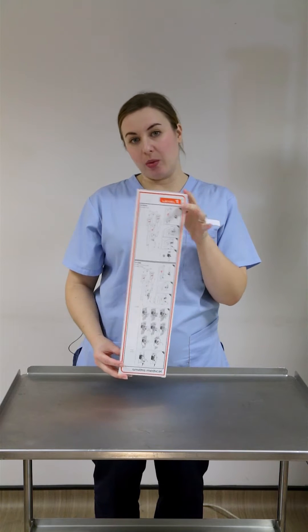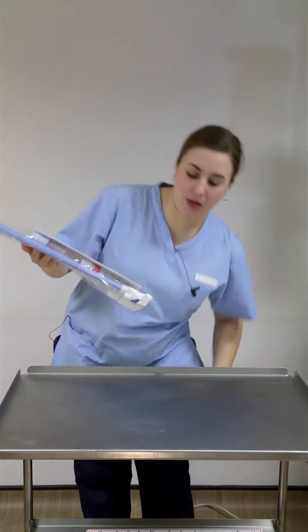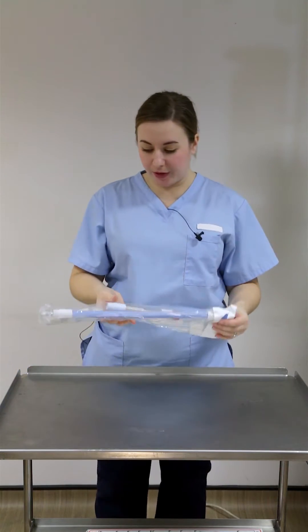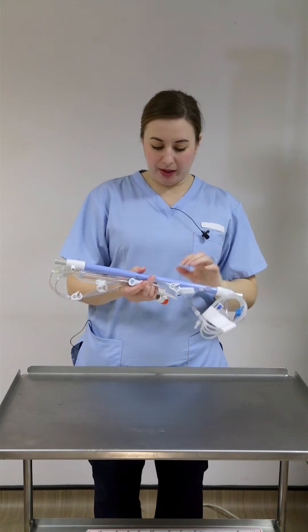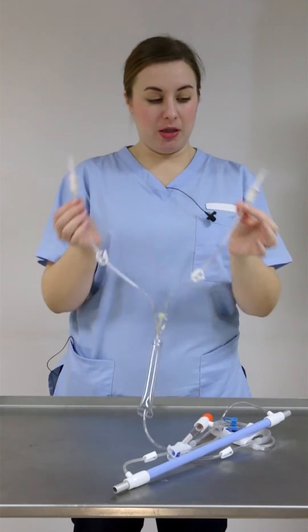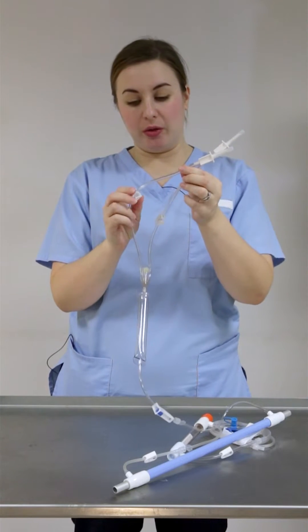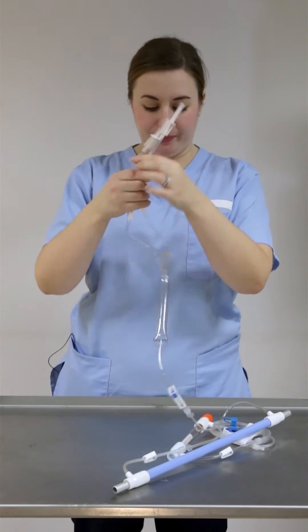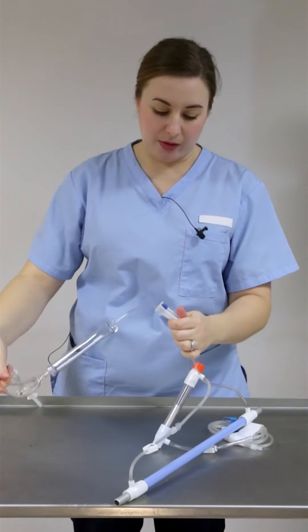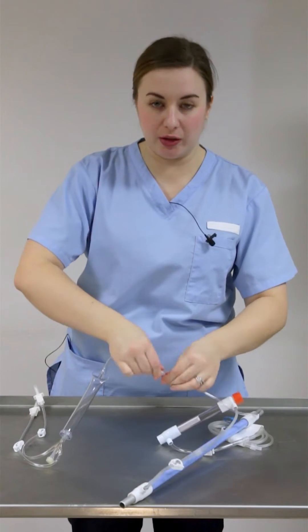This is the DI50, so just check which set you've got in your trust. They come in fairly big boxes and it explains the parts on one side, and if you forget how to put it into the machine it explains that on the other side. It comes out in a plastic package and you'll get some instructions and safety manual with it as well. It is essentially just a very large giving set. At the top end you've got two spikers to spike your fluid bag with and the key parts are covered. Under that you've got two pinch clamps, so we'll close those off like we would with any giving set that we were getting ready to prime. Then you've got an injection port, then your drip chamber. Under there there's a roller clamp — we'll roll that one down — and then there's a fixer; make sure that's securely screwed so it doesn't come off.